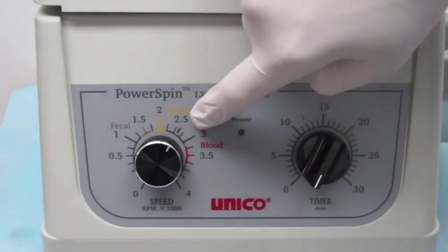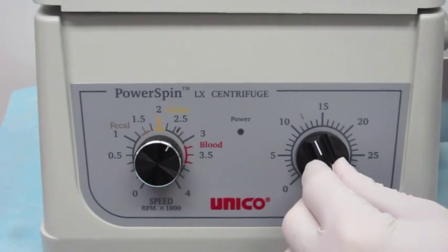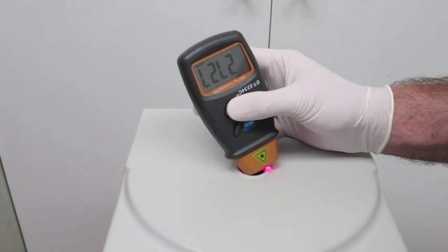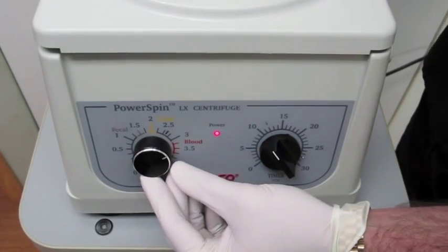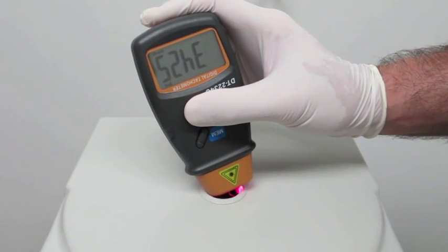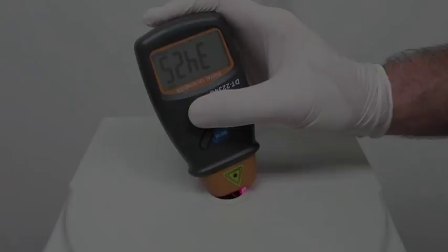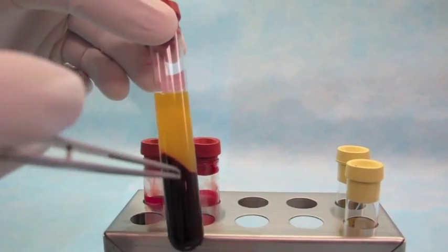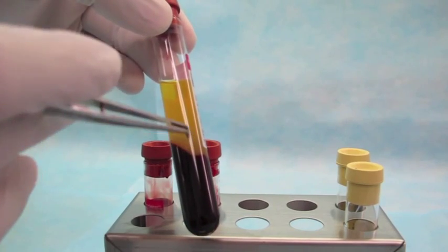2700 RPMs is the recommended setting for many platelet concentrates for a period of 12 minutes. You can see with the tachometer that the setting marked on this C858 yields 2700 RPMs. If you use a different centrifuge — the C818 or the C808 — you'll get 3400 RPMs, and the truth is it just hasn't shown to be any different at all.